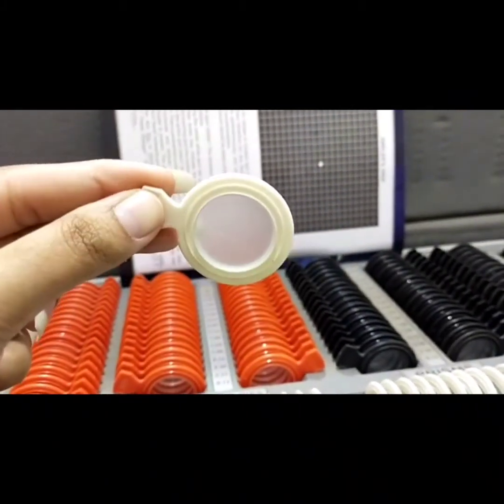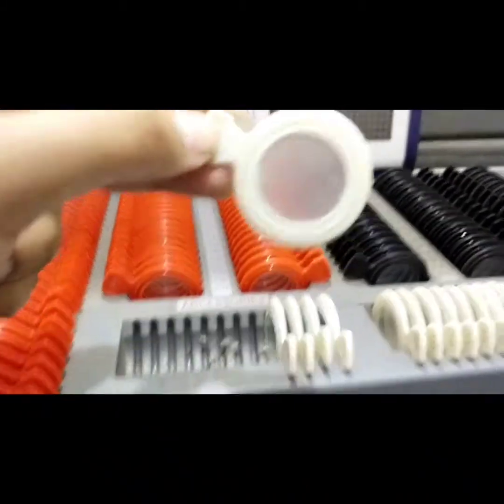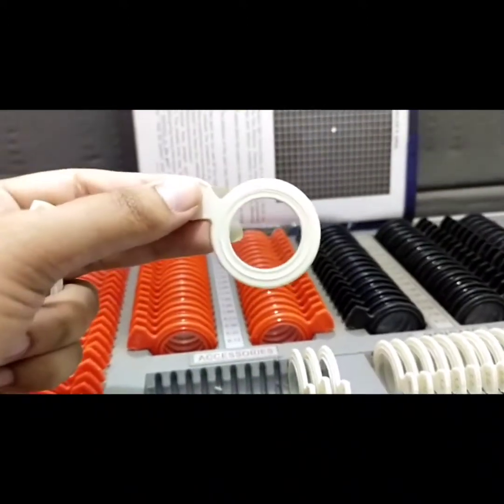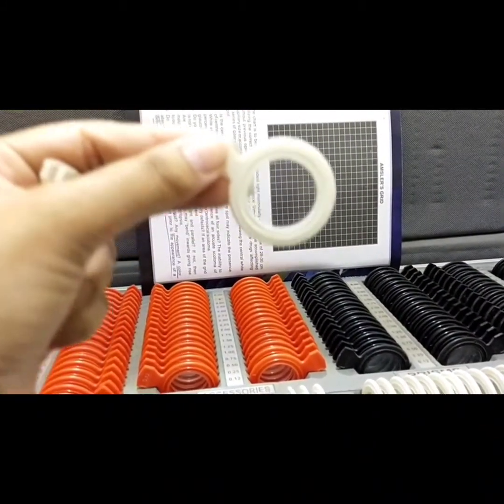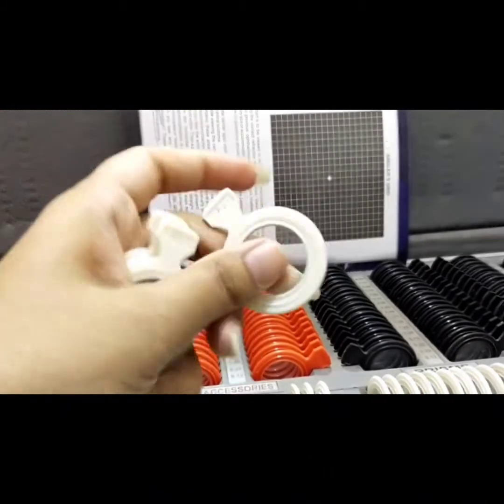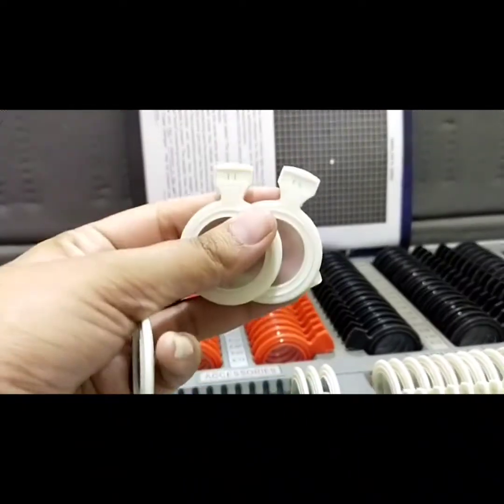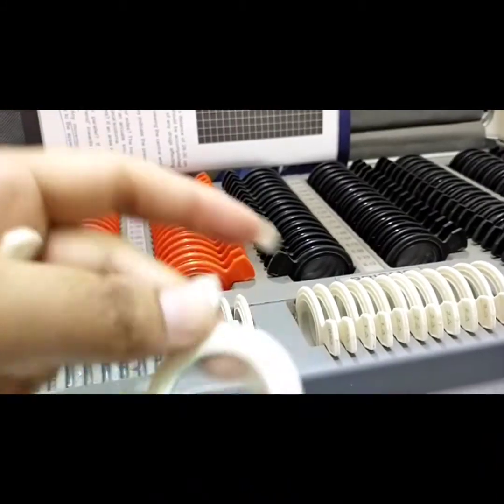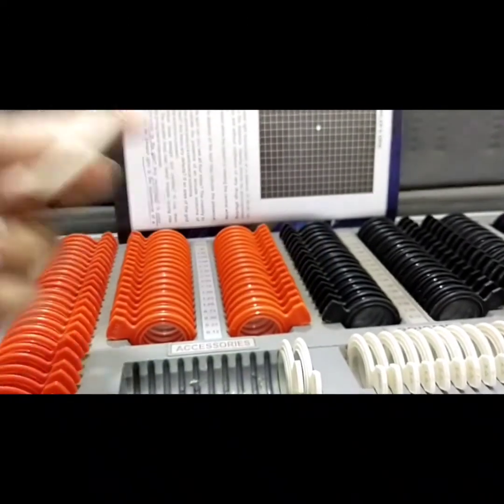The next accessory is the fogging lens. This fogging lens is in the form of a pair, as you can see. It is used in doing subjective refraction of nystagmus patients. Next is the plano lens — it has no power. As you can see, I am moving it along the grid of the Amsler grid and it is not moving, confirming this lens has no power. It is used to determine malingering of patients. You can see it is engraved PL for plano lens, and the fogging lenses are engraved FL.